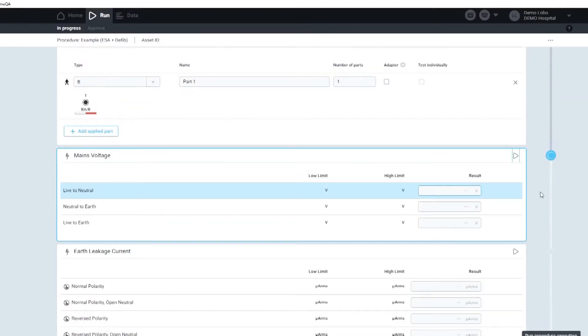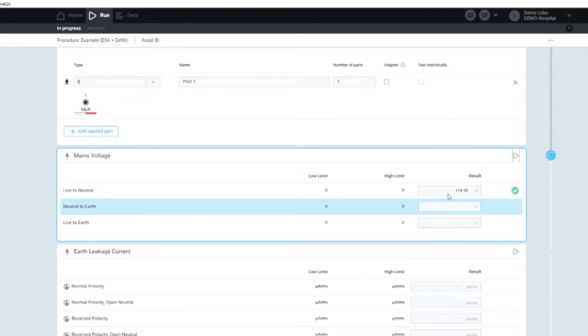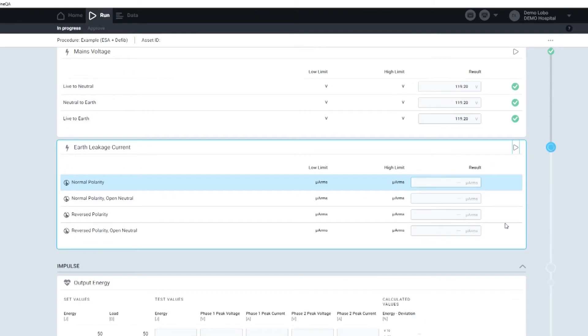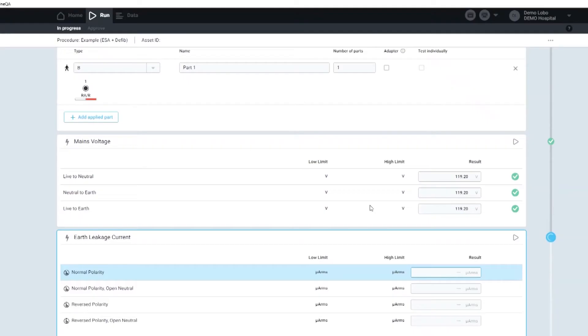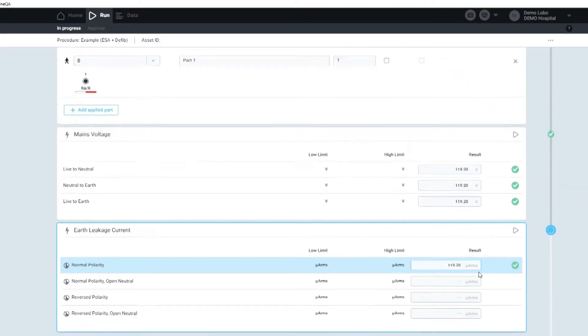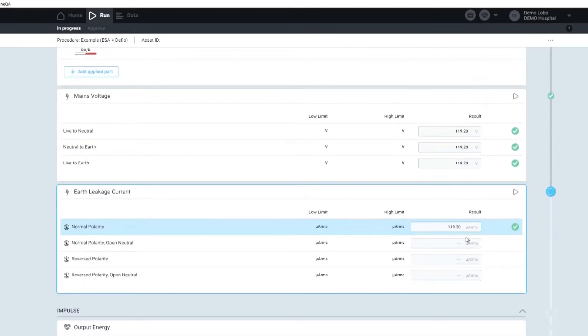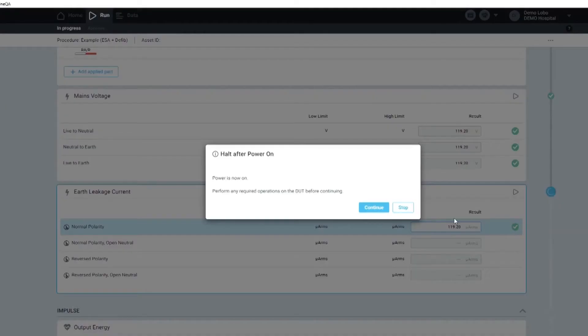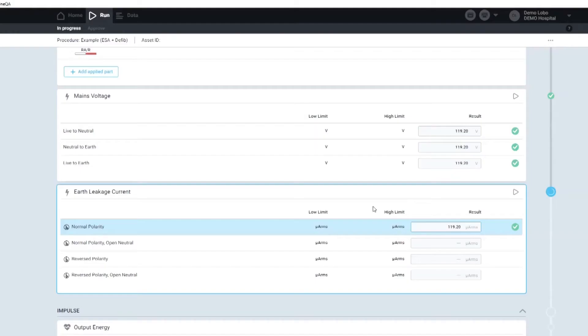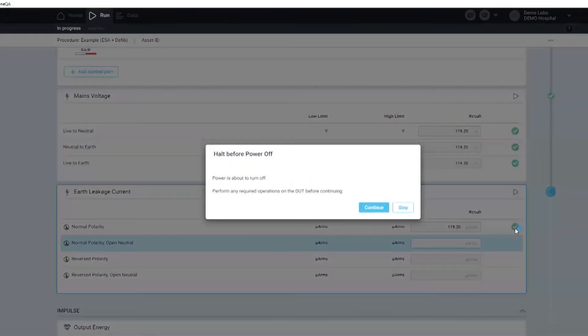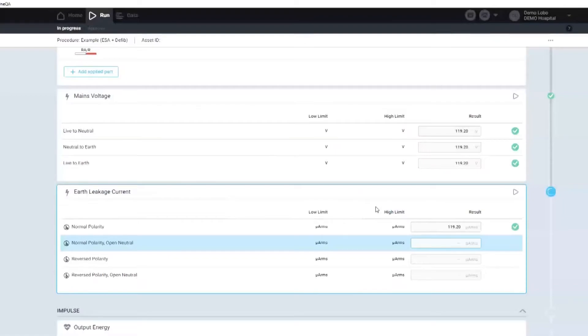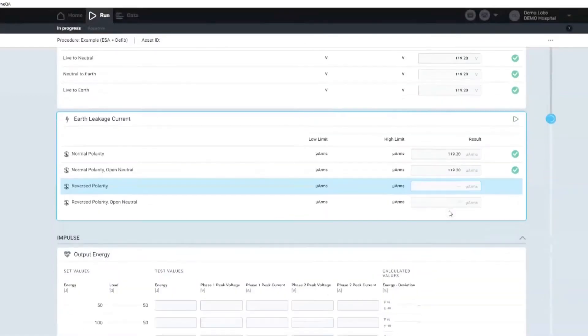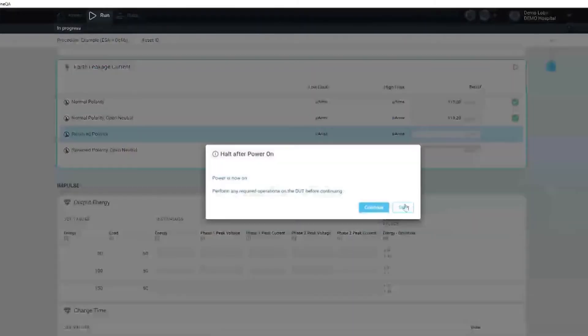Now, as you can see, the auto-populate feature will appear. All I have to do is follow the instructions that are prompted by our software, and I get the check or the fail notice on my report.